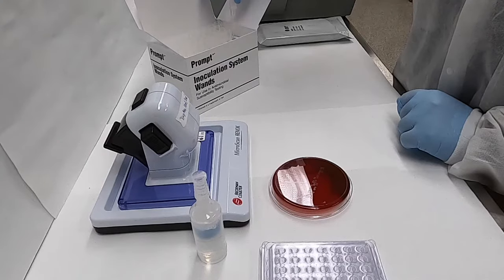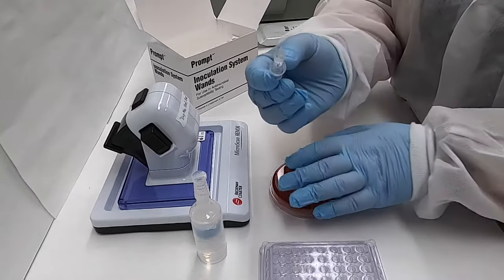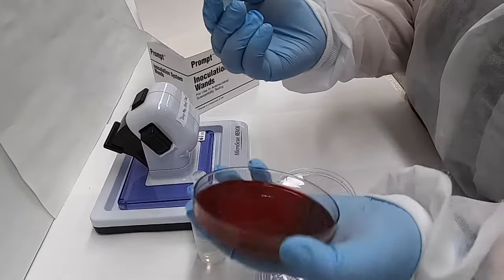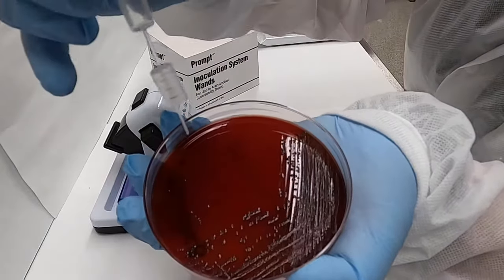Dilution-based susceptibility test methods are similar to the Kirby-Bauer in that we start by making a suspension of bacteria of known density.